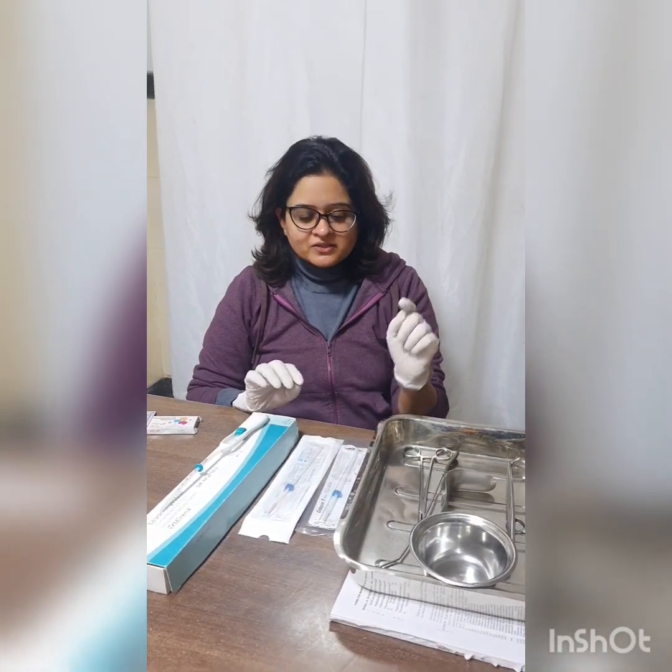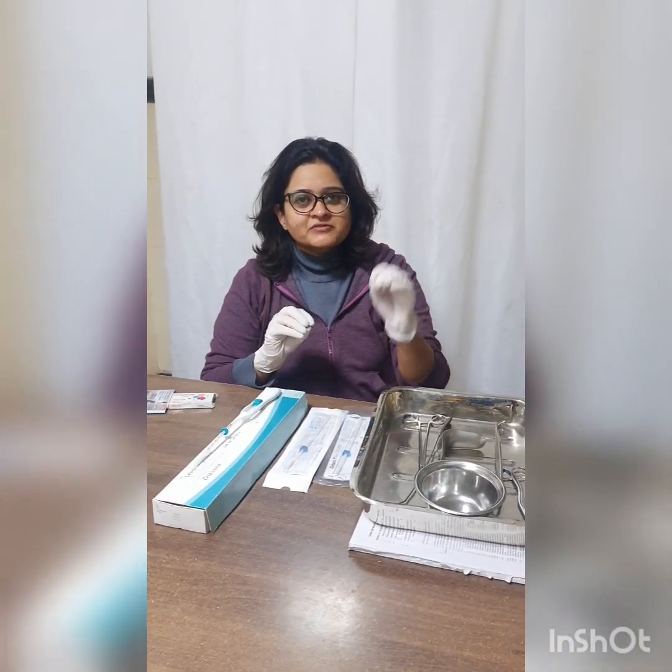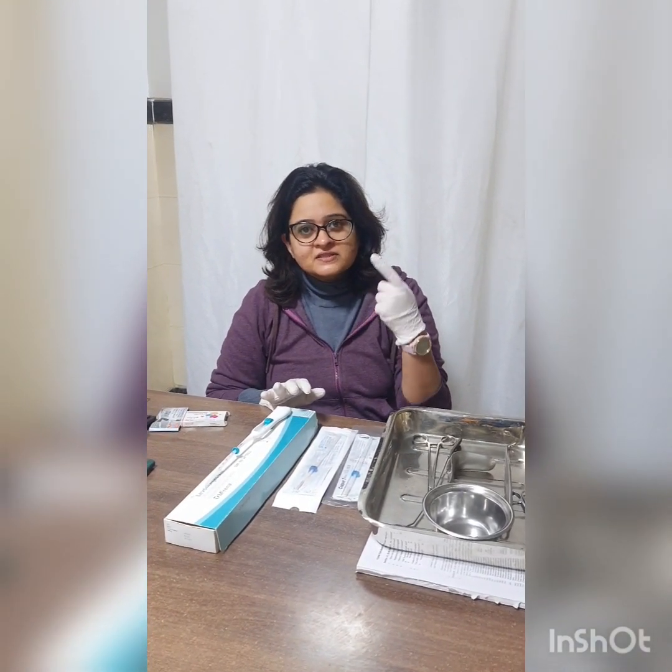I am Dr. Yenna Chawla and today I thought we would discuss very briefly about intrauterine devices. There are three generations of devices. The first is the Lippes Loop — the non-medicated devices — which are outdated and no longer available.